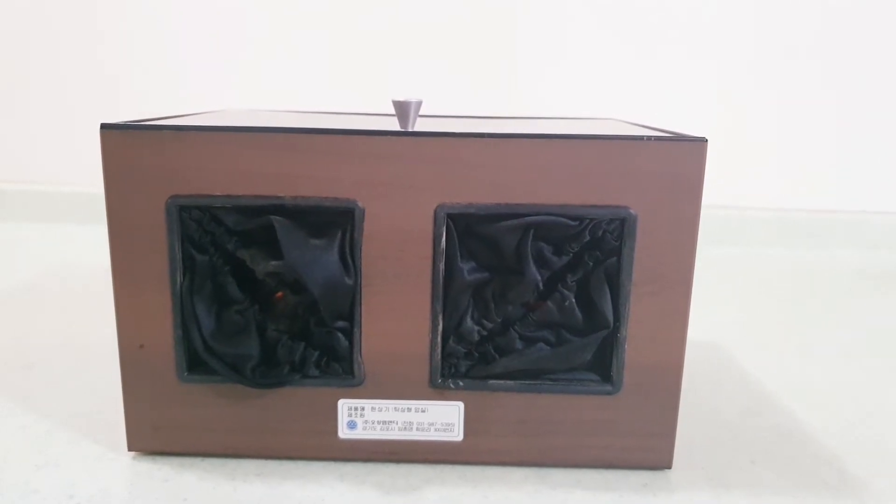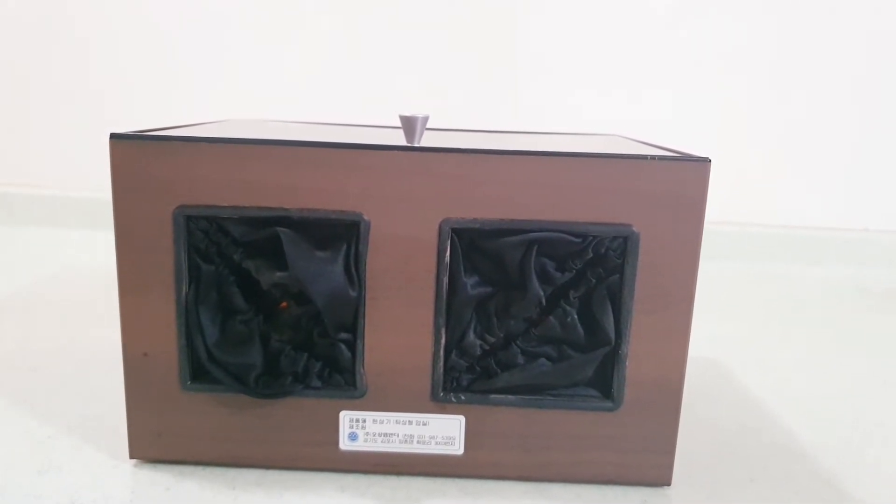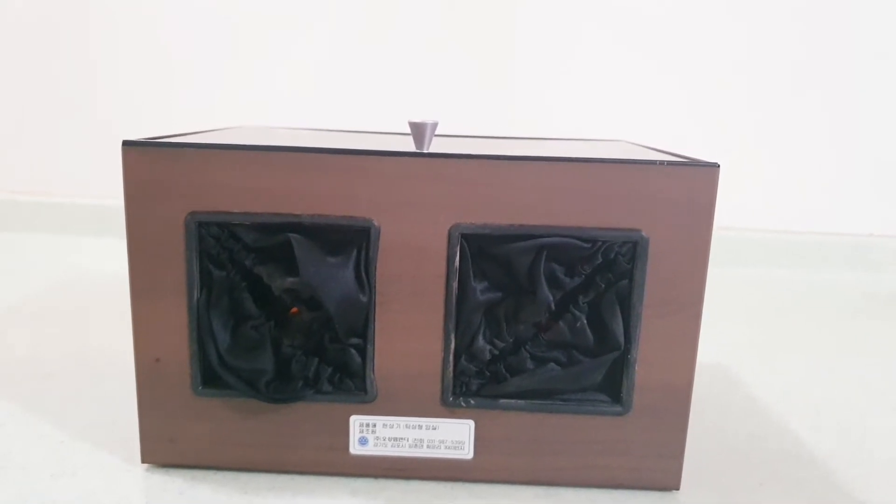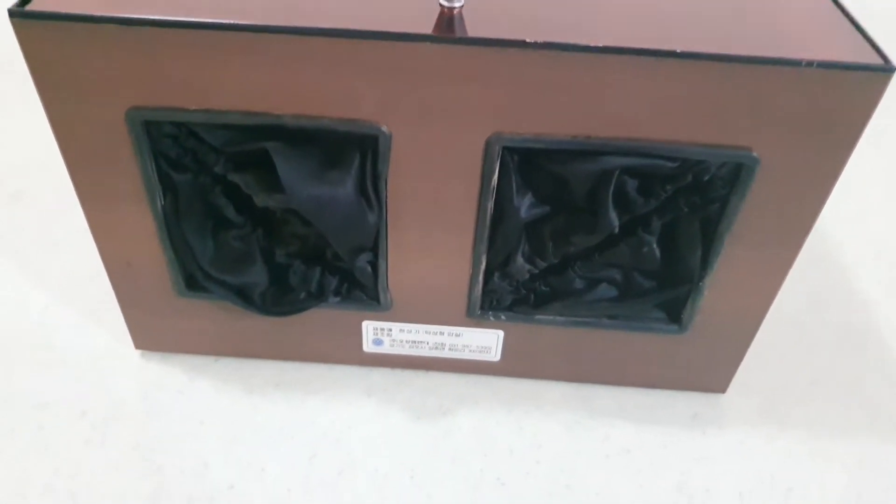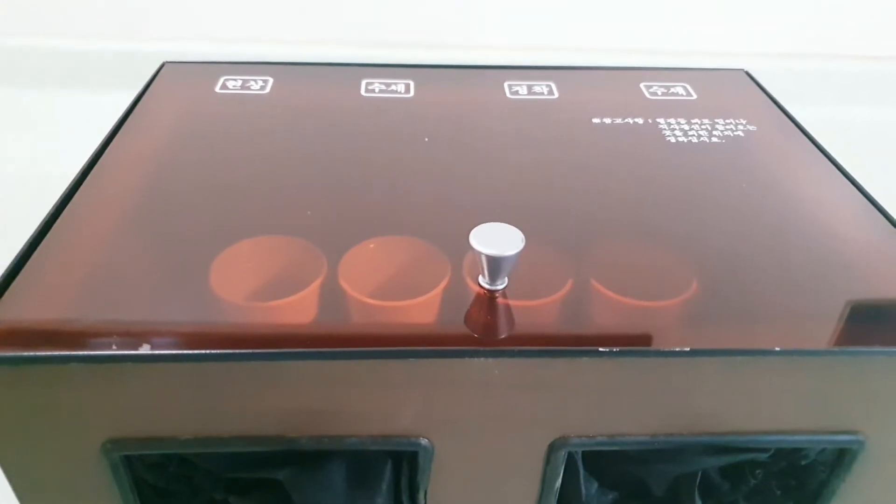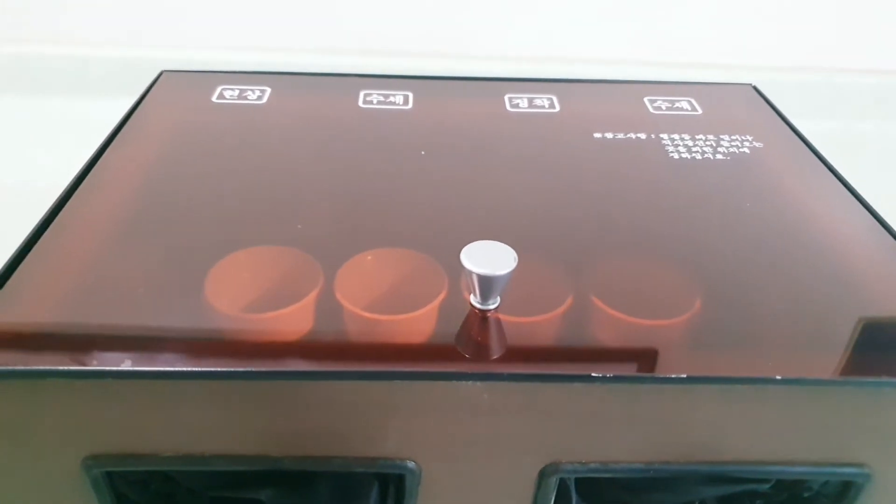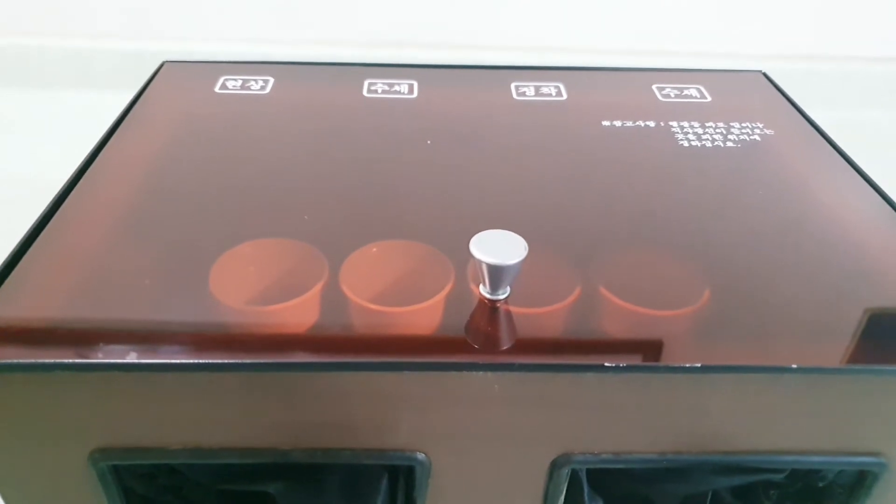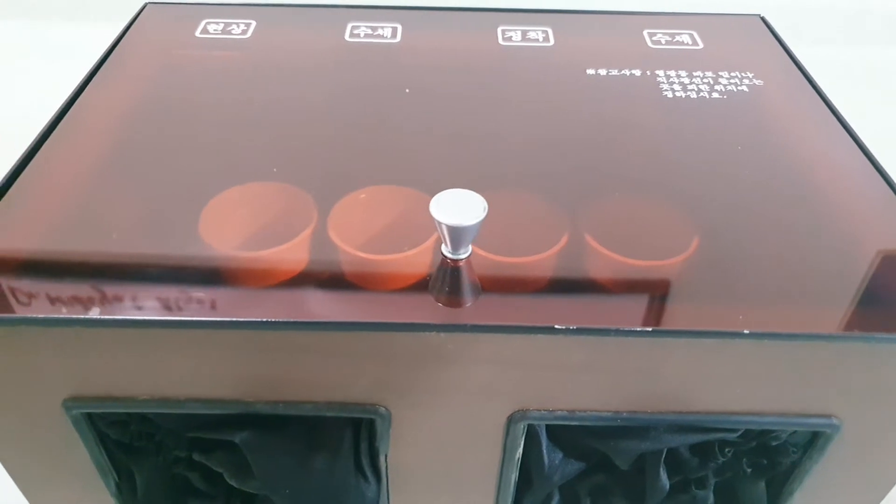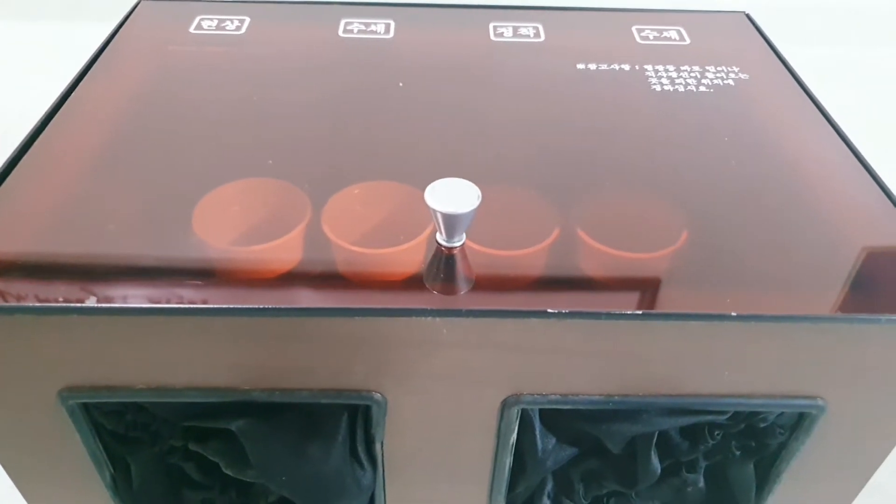Processing of an x-ray film. What you see here is a daylight processor, which is used in manual processing. It has an orange to red-tinged glass cover, inside of which there are four compartments.